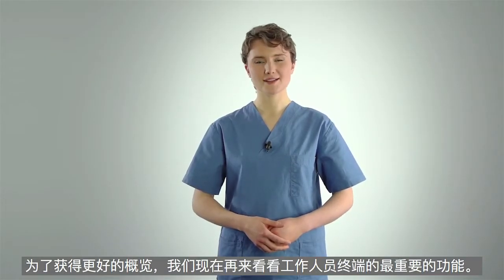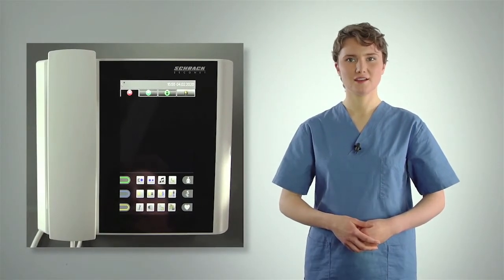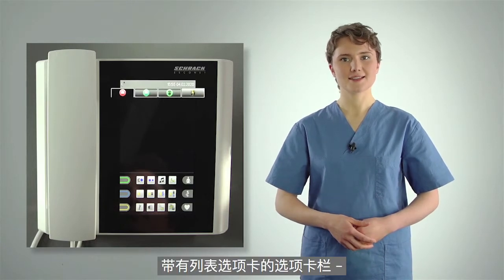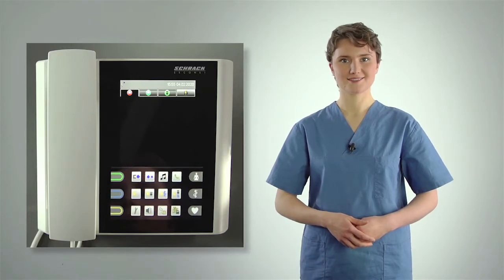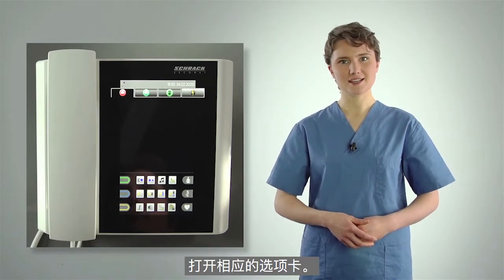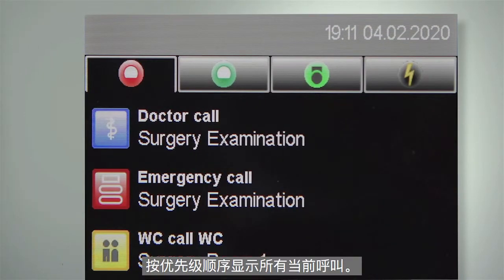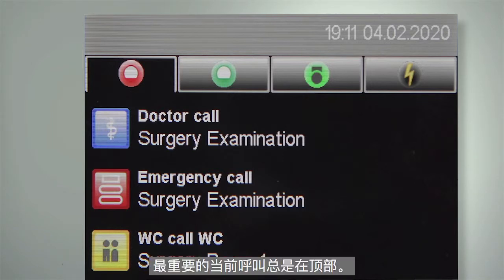To get a better overview, we'll now take a look at the most important functions of the staff terminal again. The user interface is divided into four main areas: the status bar, the tab bar with the list tabs, the list area, and the functions area. Briefly pressing one of the four list tabs across the top opens the corresponding tab. The call list on the far left displays all current calls in order of priority — the most important current call is always at the top.